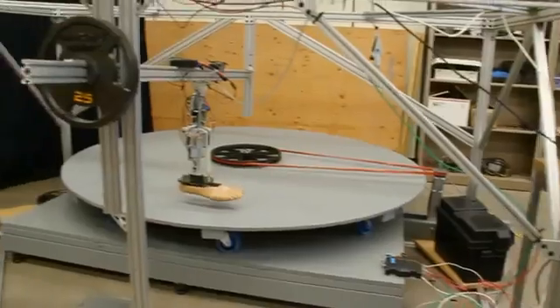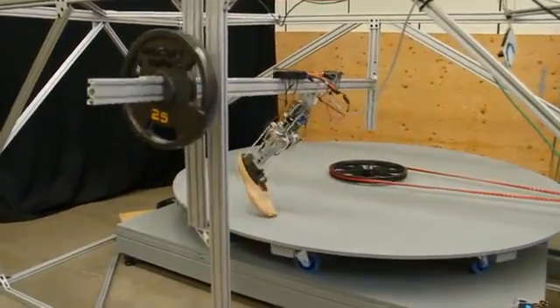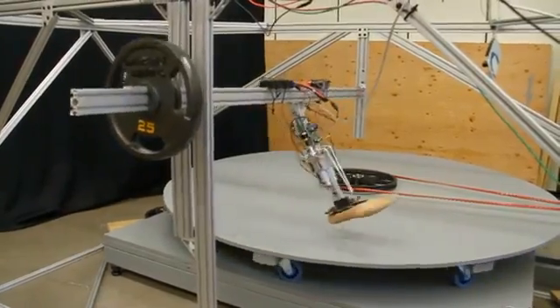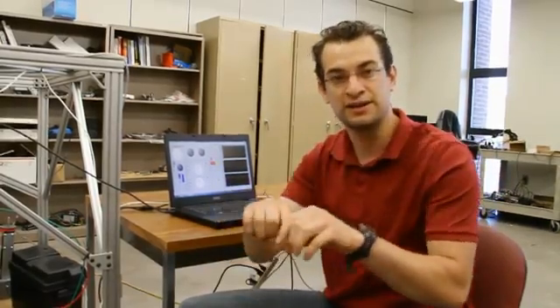What's innovative on this ankle foot prosthesis is that we are using a cable-driven mechanism which allows us to have a modular system. We basically can move these motors and gearboxes anywhere, for example, in a backpack, and similar to a bicycle, you have the cables going through a cable housing.